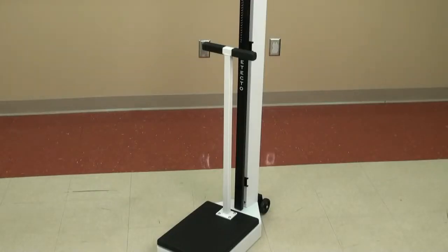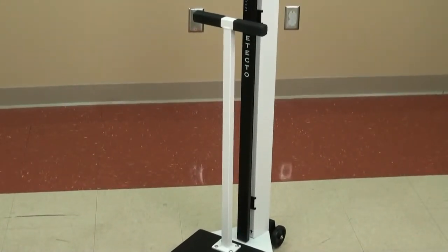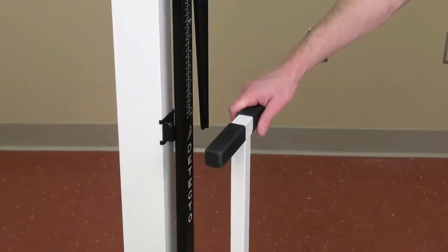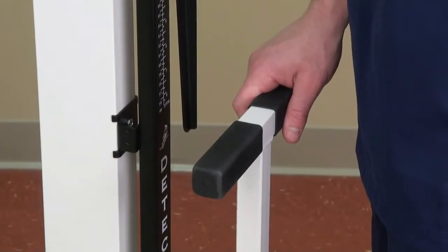A handpost with padded rubber grips is included on some models as an important asset to elderly or feeble patients, providing great stability, comfortable assistance, and aiding in accurate weighings.